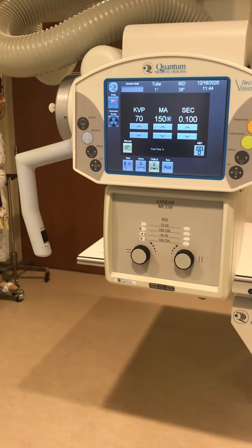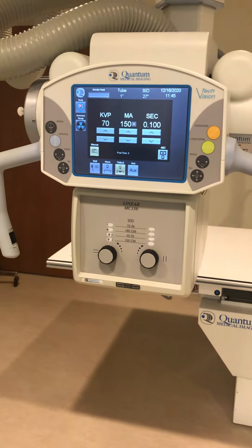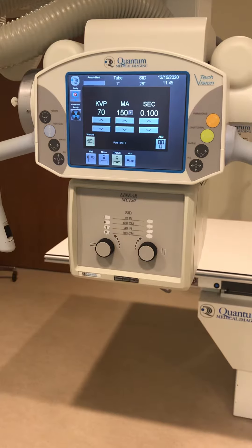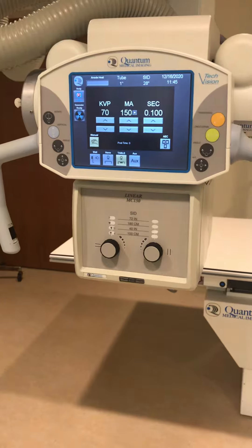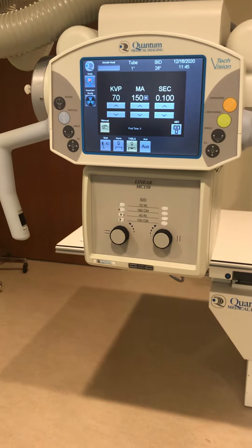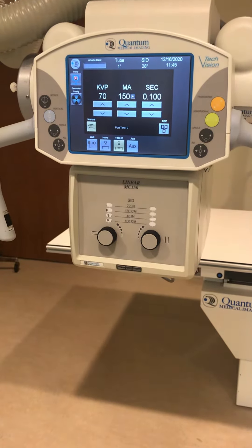Hello RAD 111 community. This is the next portion lining up the x-ray tube with the wall bucky. There are different ways that you can take an x-ray. The patient can be on the table or in a stretcher with the plate directly underneath them, which would be tabletop or TT. The patient could be on the table with the DR plate in the bucky tray, which is considered table bucky. We also have wall bucky if the patient is required to stand during the x-ray.